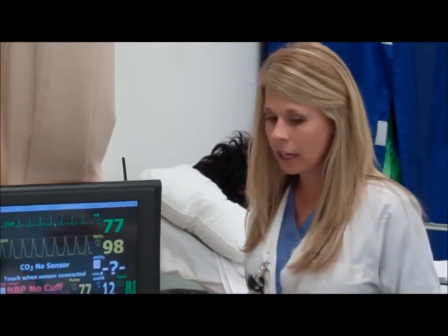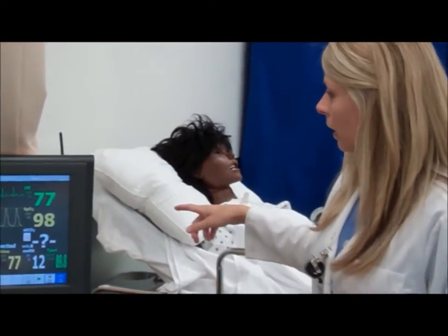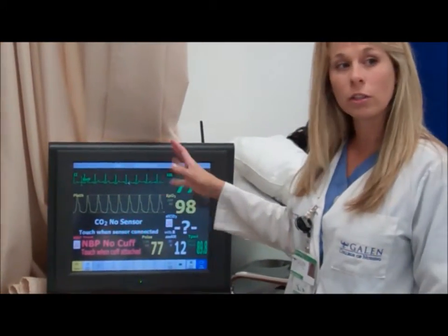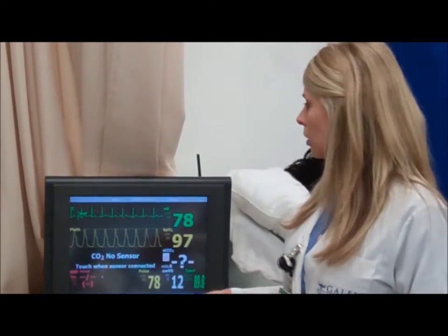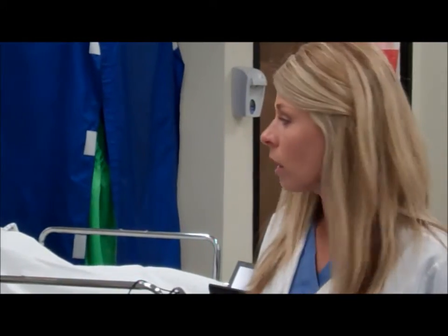He's also hooked up to an O2 detector on his finger, and if it's not connected, it won't pick up. We can actually do blood pressures on him because this is all touchscreen, so the students can take care of him by themselves — they just touch it, press start, and it brings up a blood pressure. He's all controlled by an instructor, who will actually make him better or worse depending on what the student does, putting them in a real-life scenario.